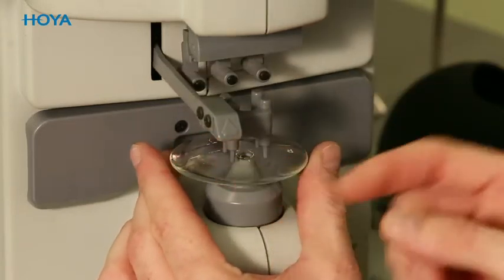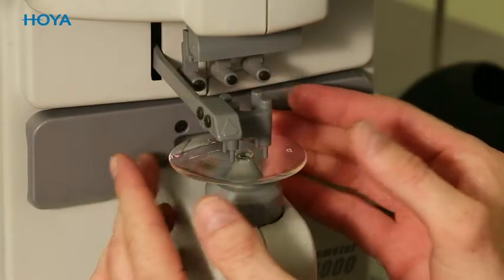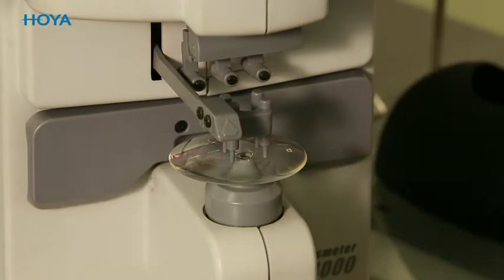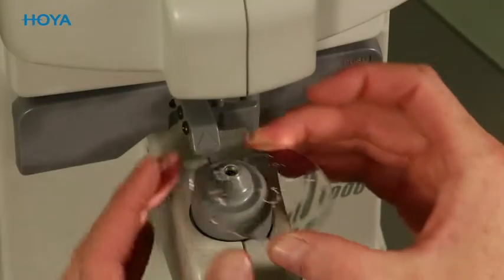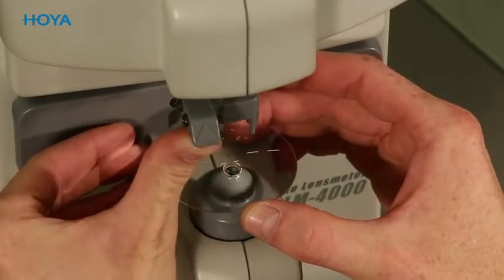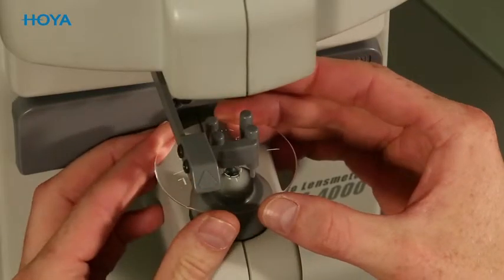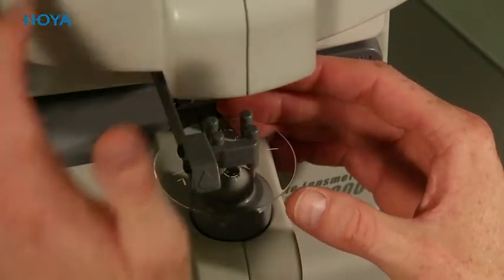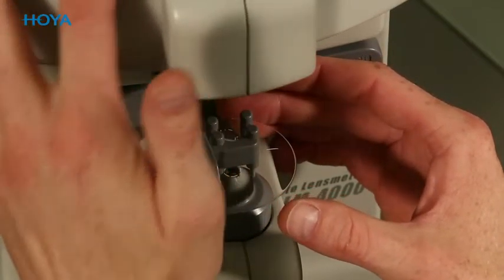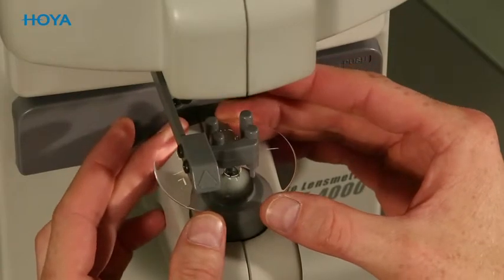After checking the marking of the lenses, place them in the meter correctly. Please make sure that the lens surface is not tilted on the aperture of the focimeter. To ensure that the lens is not rotated, the paint mark on the lens can be used as a reference point.